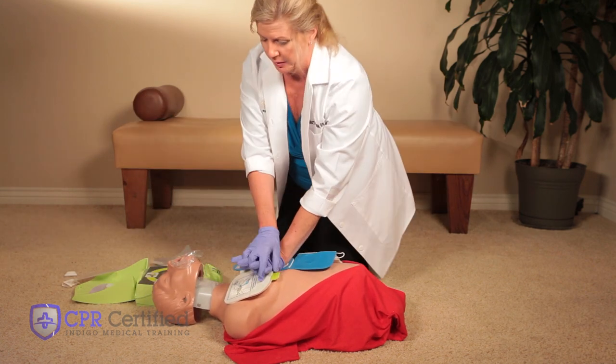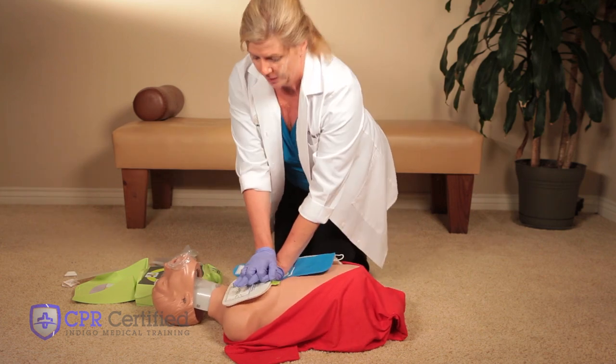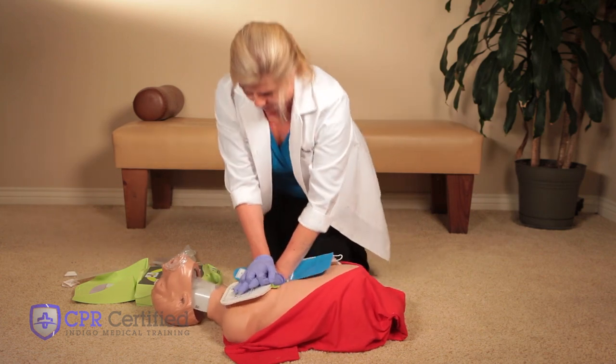After every five cycles or about every two minutes, allow the AED to analyze the rhythm and continue CPR until the emergency medical team arrives.